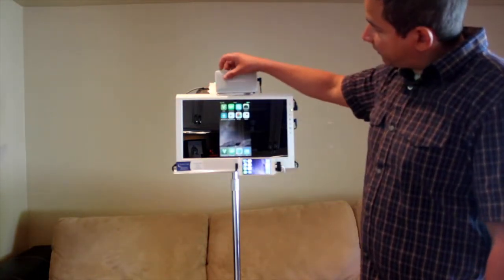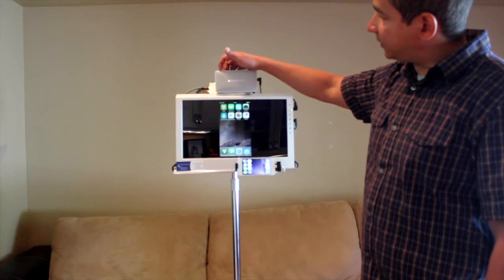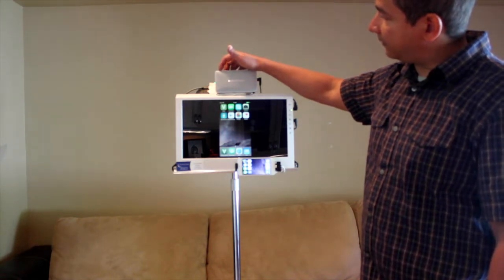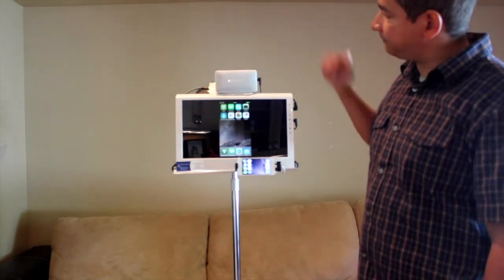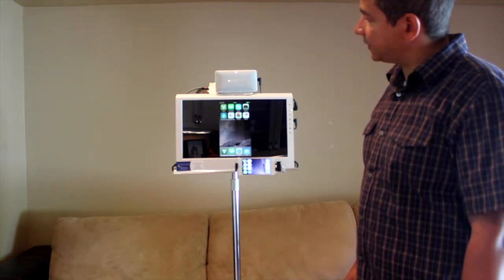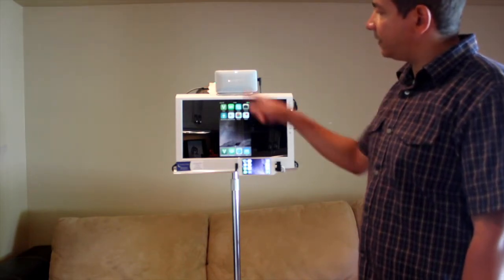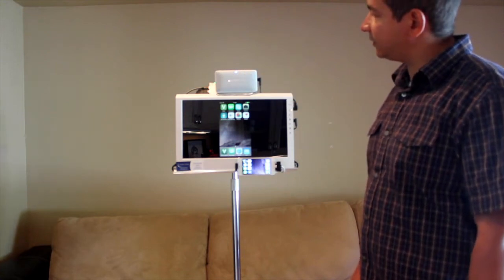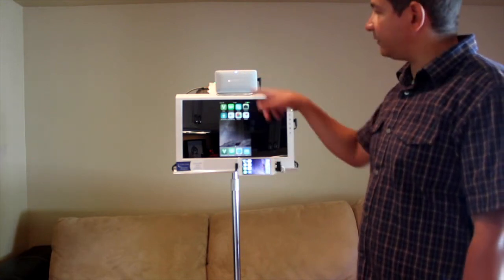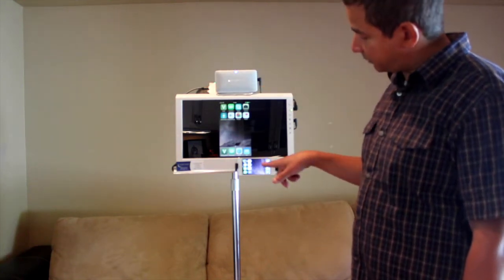Once the screen is open, we're going to turn on the speaker which is the top left button. As you turn on the speaker it'll make a beep, the light will turn white, and once it's connected to the handheld device the light will turn blue.